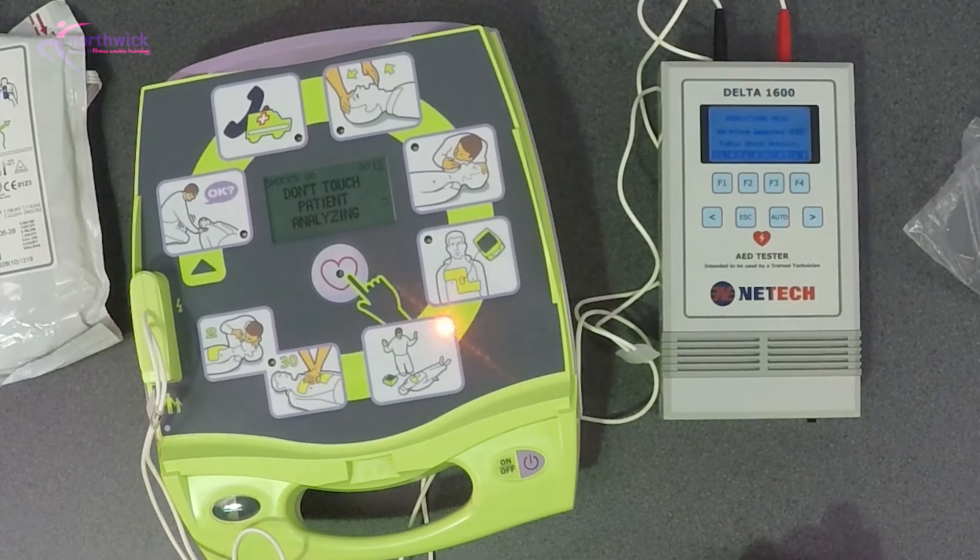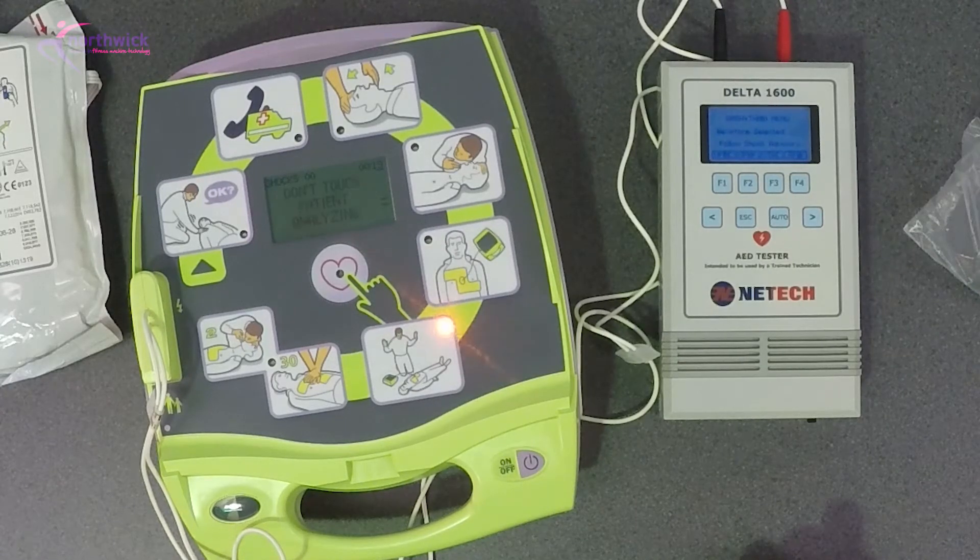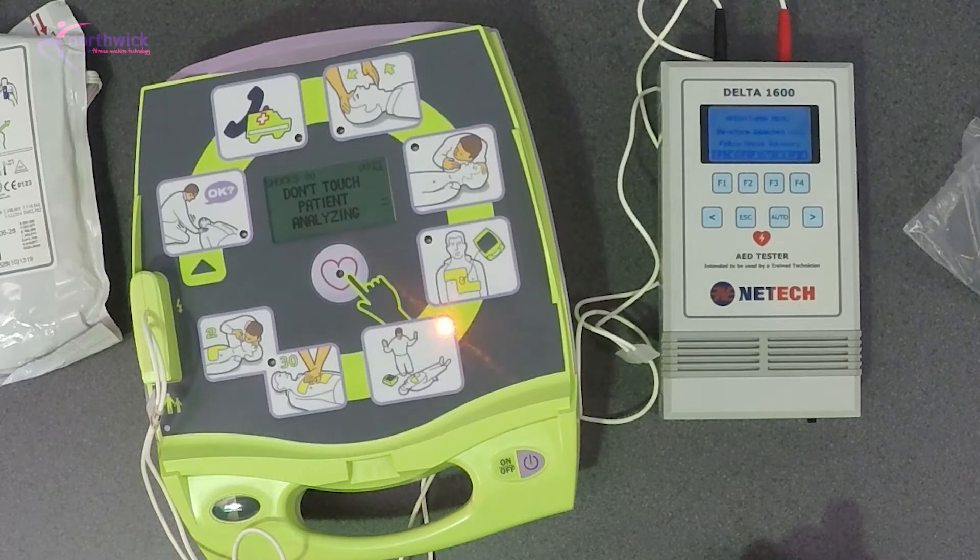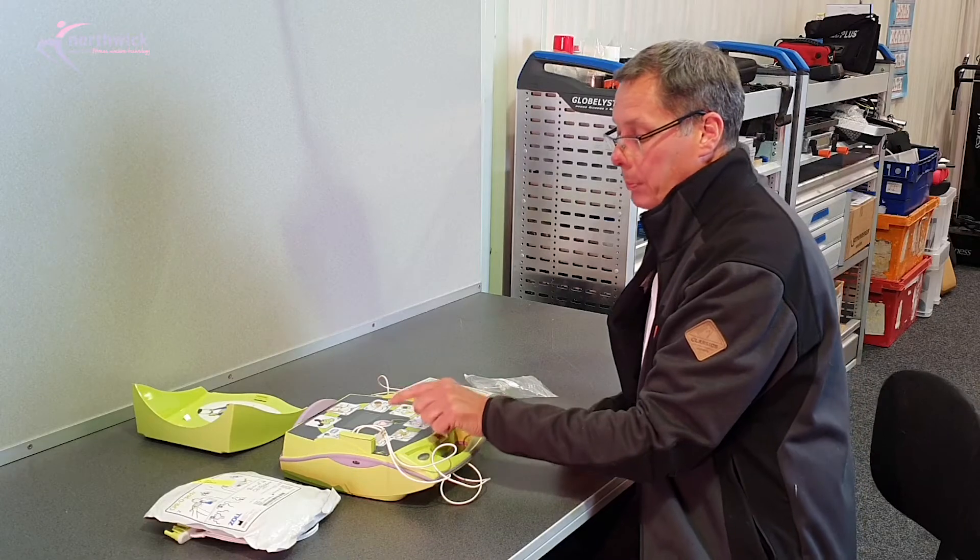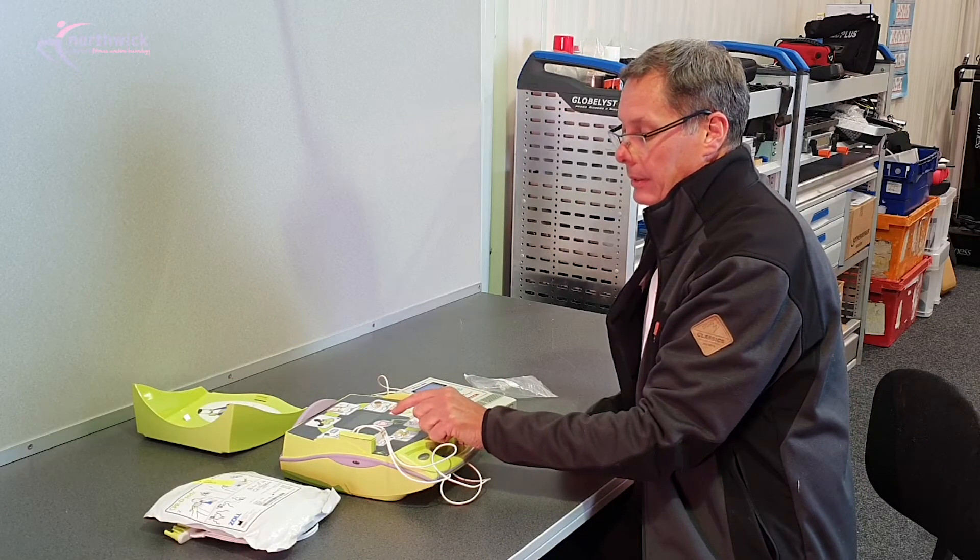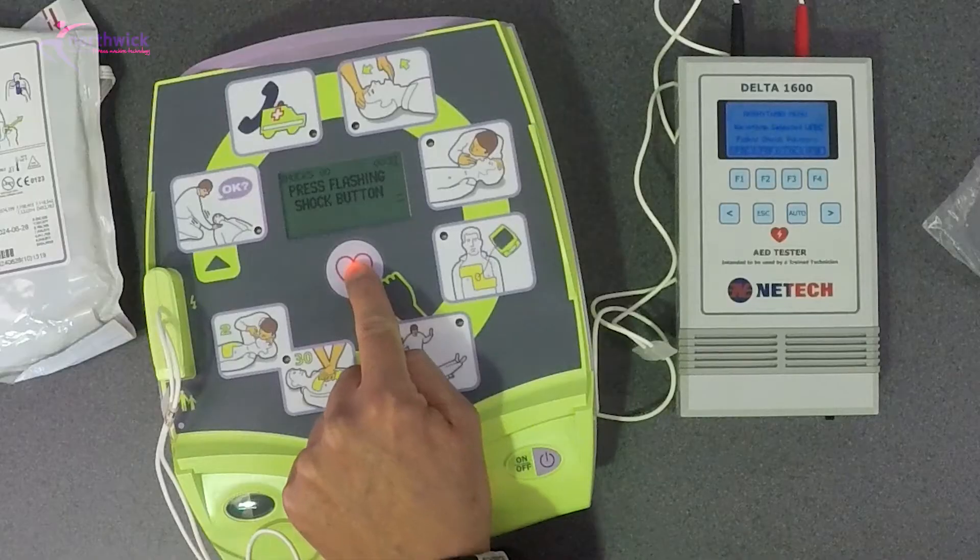Don't touch patient, analyzing. Don't touch patient, analyzing. Shock advised, don't touch patient, press flashing shock button.